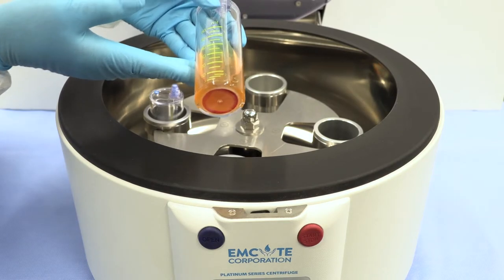After centrifugation, the Platelet Buffy Coat layer will be clearly visible at the bottom of the device.